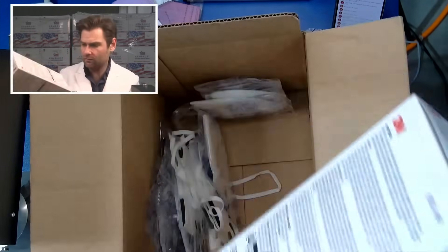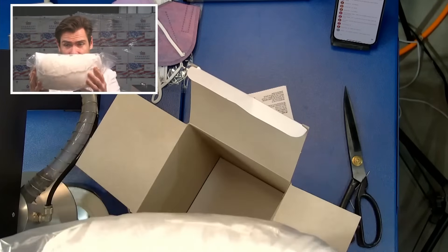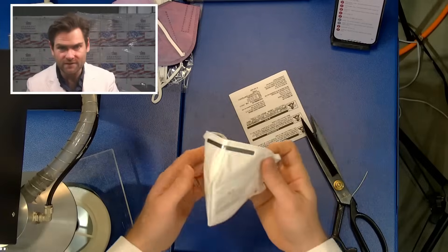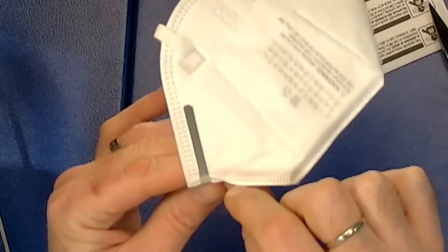Whoa. This has got to be like... this was like $1,000. Why'd you send me that? And it's sealed — look, it's sealed. I see why you sent it to me like this. I actually do appreciate that. This is really cool. So, this is a double standard mask. It's a KN95 and an N95. I did not know NIOSH would have approved that. 3M does this — I think it's hilarious. It's a great nose wire, but look, it just folded. It just seems like bad design to fold it over like that.